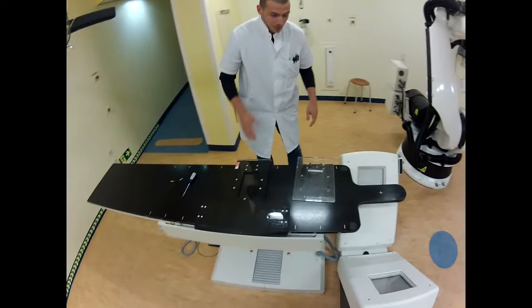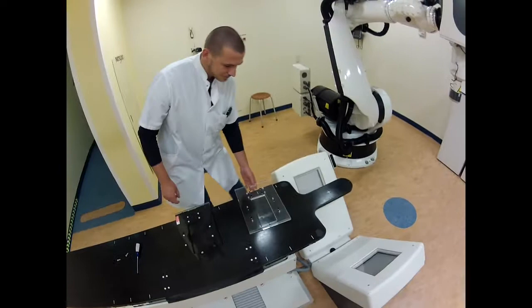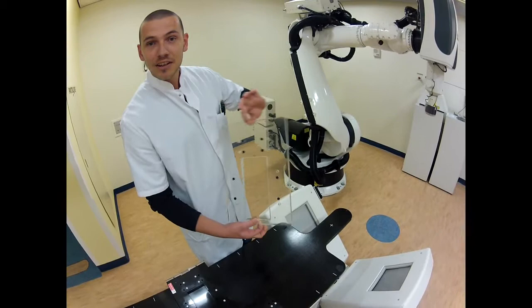The problem with this CyberKnife table in particular is that you cannot do clockwise, counterclockwise rotations which you want to correct when you are doing CyberKnife treatment. So what we have done, we have made a turning point here and a little slide where you can turn the plate around this mid section.